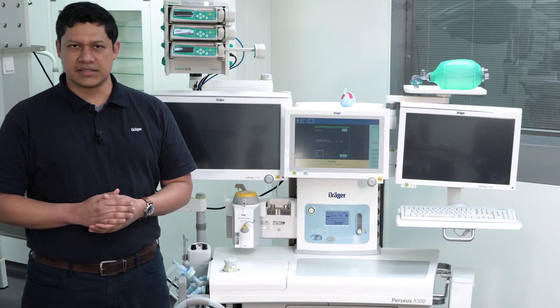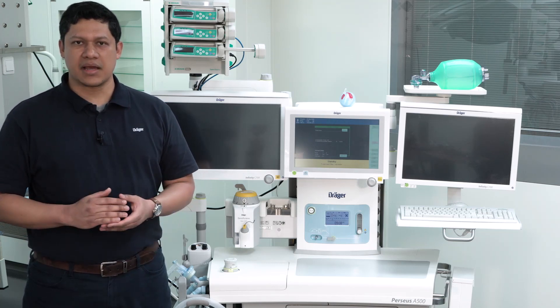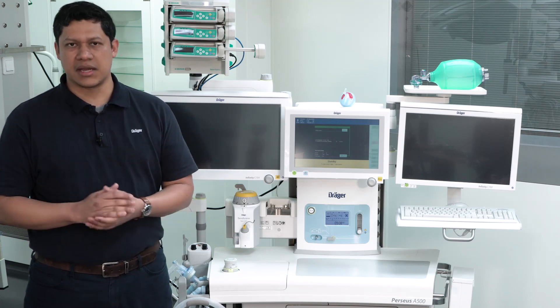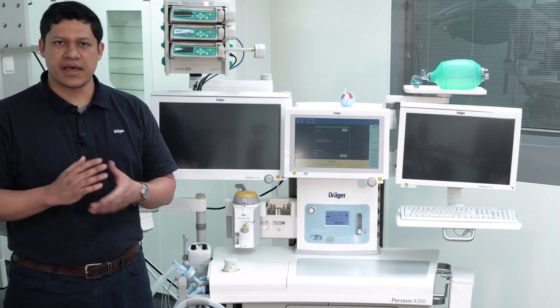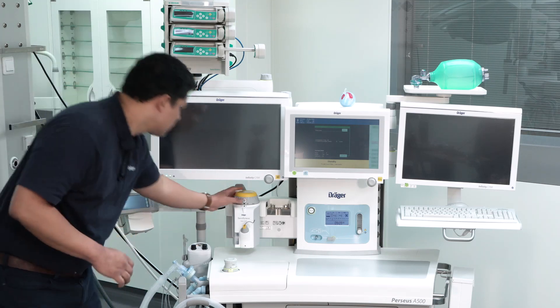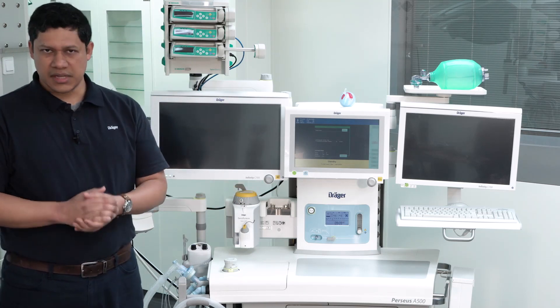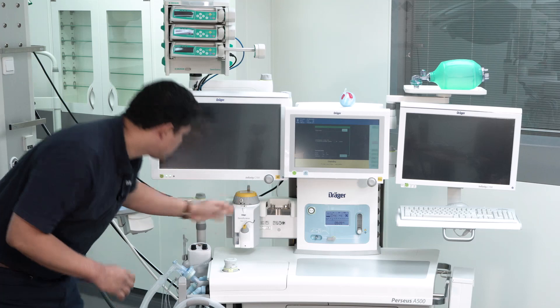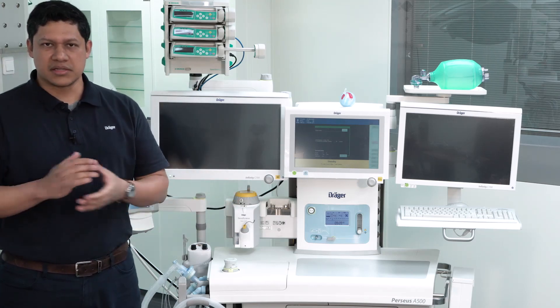The smallest amount of anesthetic agent might trigger malignant hyperthermia on the patient or on the clinical staff. To remove the vaporizer, press the button and move the dial to the T for transport position. Then turn the lever. Be aware that the vaporizer is quite heavy.